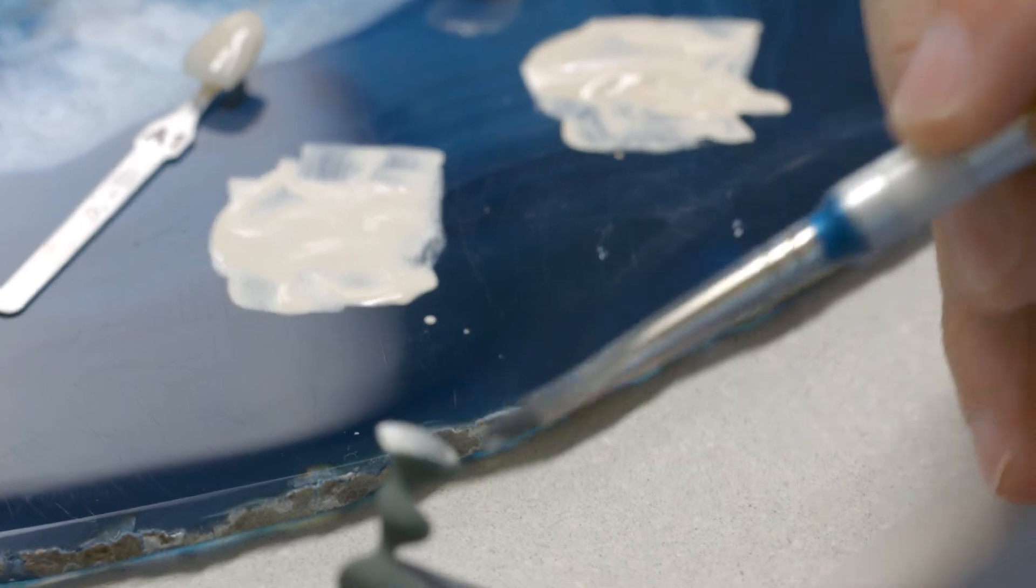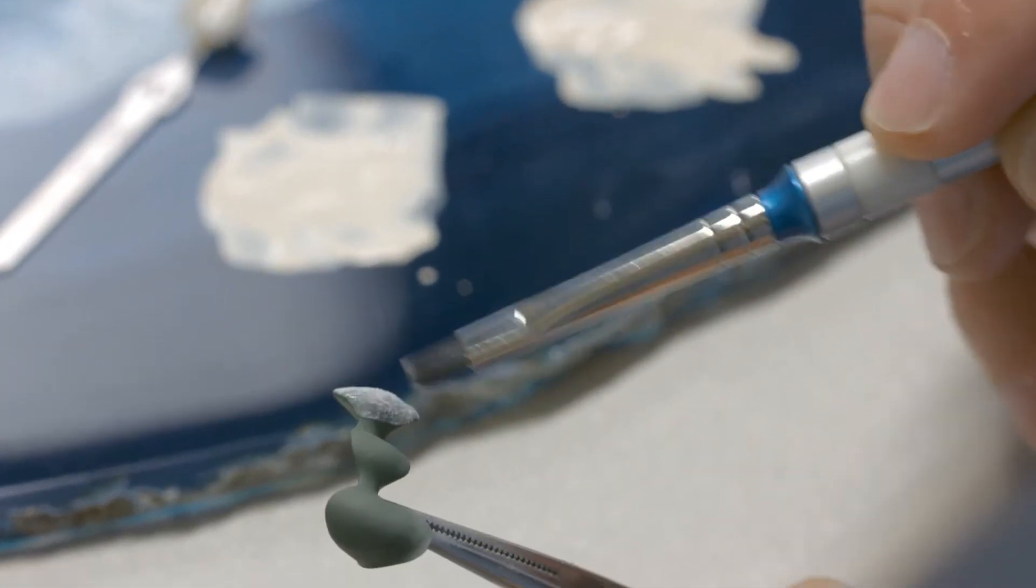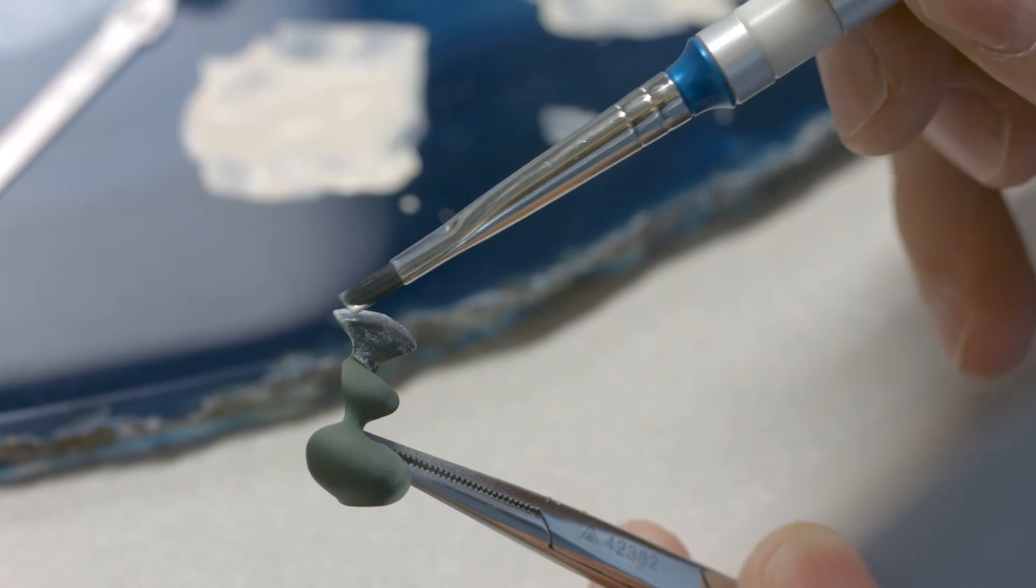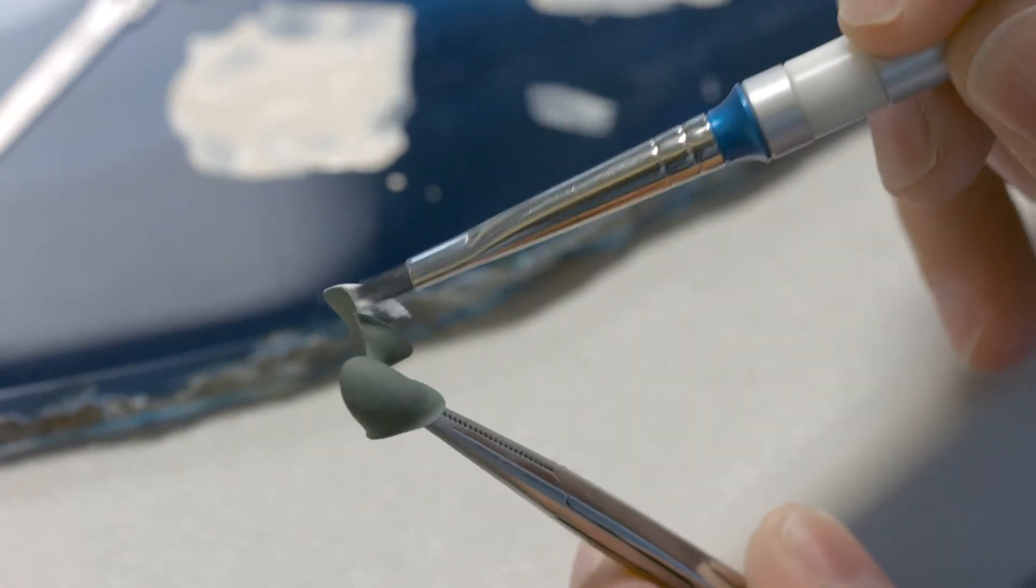Apply a thin wash layer with a brush on the metal framework. Agitate or vibrate the opaquer so that it settles in the micro-retentive areas.